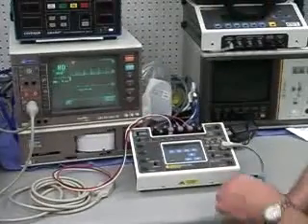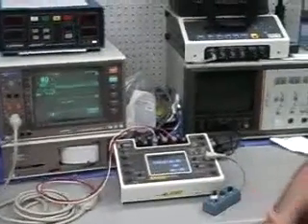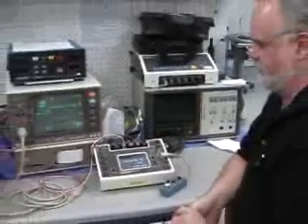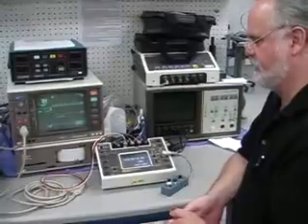Okay, Mike Bryles, medsim300B, Medicine, Dallas, Texas. And we're just going through the basics of the Fluke Biomedical medsim300.